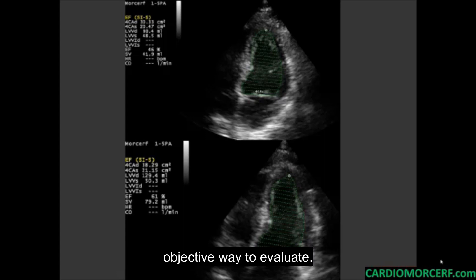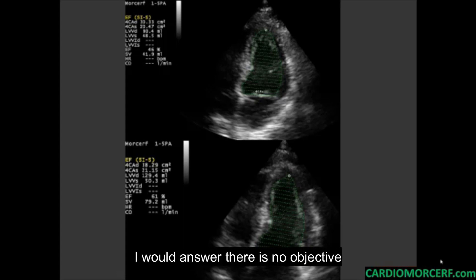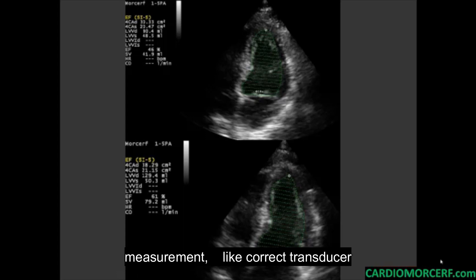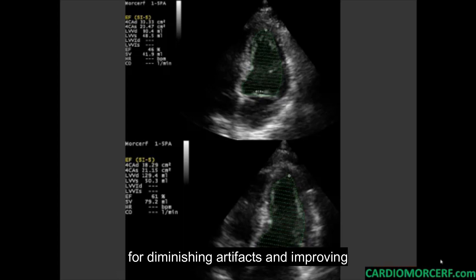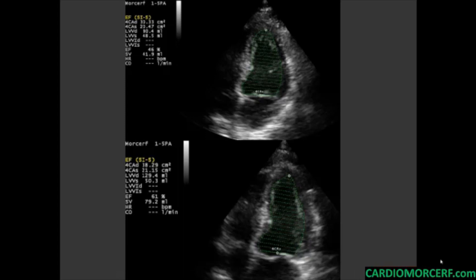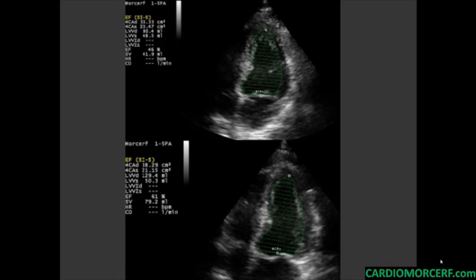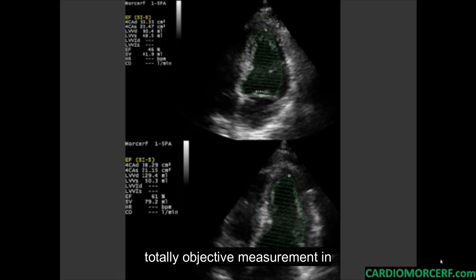Then you say a measurement is an objective way to evaluate, and the eyeball is subjective. I would answer: there is no objective measurement in echocardiography. All the procedures to achieve the measurement — like correct transducer position, better settings of the apparatus for diminishing artifacts and improving resolution, where to set your cursor to measure, deciding what is endocardial wall or trabeculation — they are all subjective. I defy anyone to tell me there is a single, totally objective measurement in echocardiography.